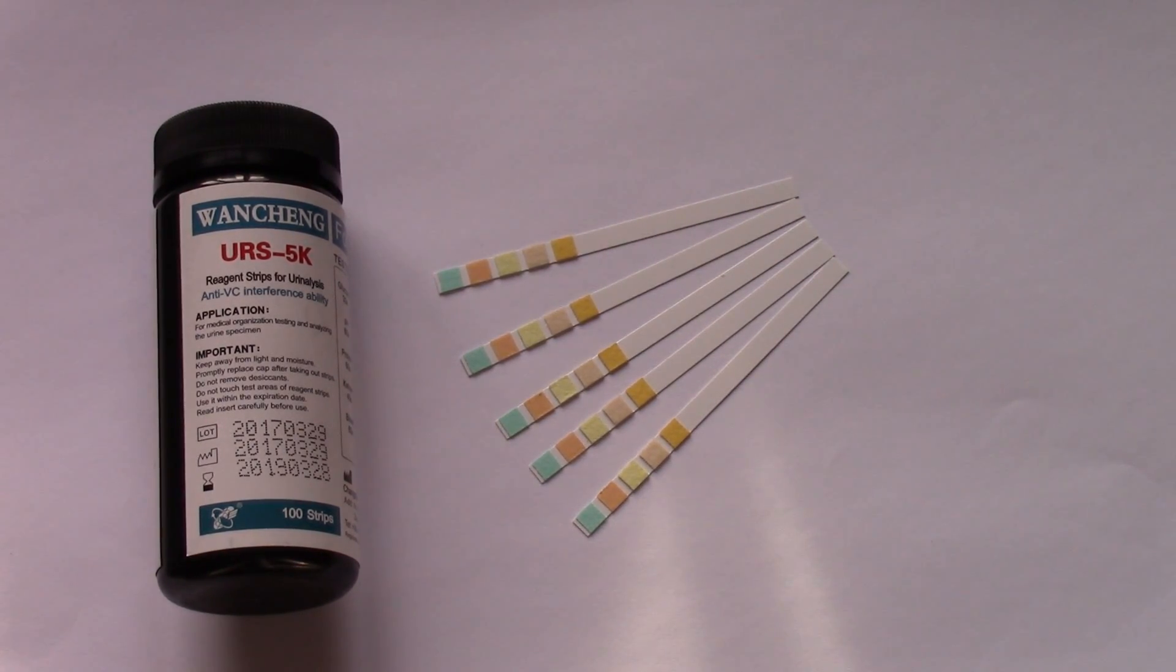Before we go to what the parameters are and what you look for when screening for specific illnesses or conditions, we're just going to run through a little bit on urine reagent test strips and what to look for when buying one of these products.